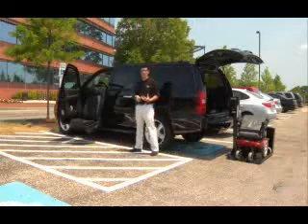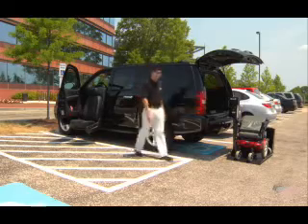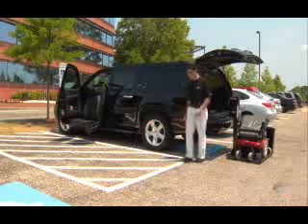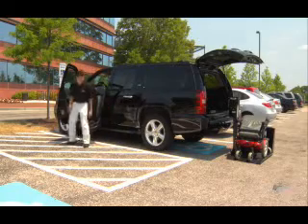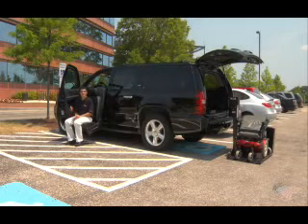Well, I mentioned earlier that we break down the problem into three discrete parts. We talk about getting the person in and out of the vehicle, and that's solved with the Freedom seat. We talk about getting the chair in and out of the vehicle, and that's solved with our tracker platform lift. And then the last piece is, with the person seated over here, how can the chair close the loop to the person? So the way that we solve that problem is with robotics.